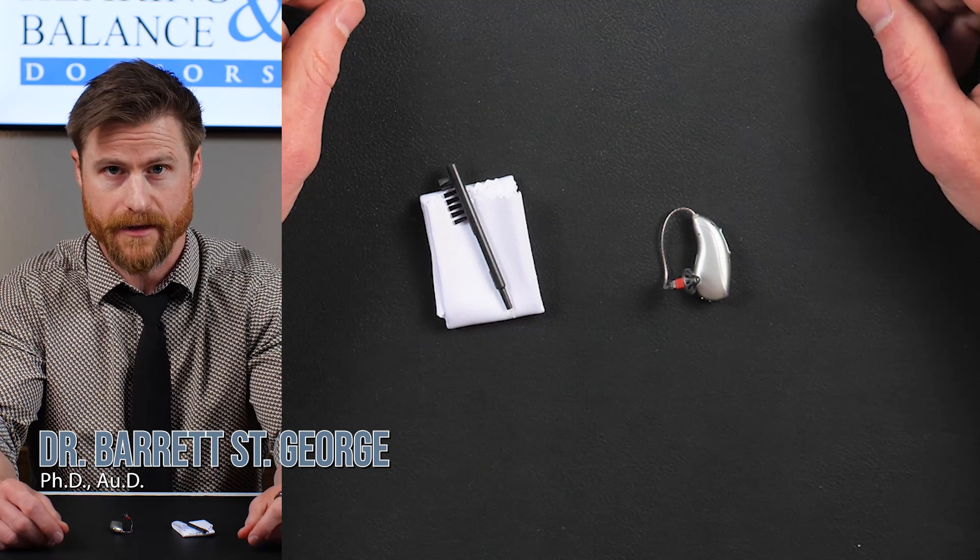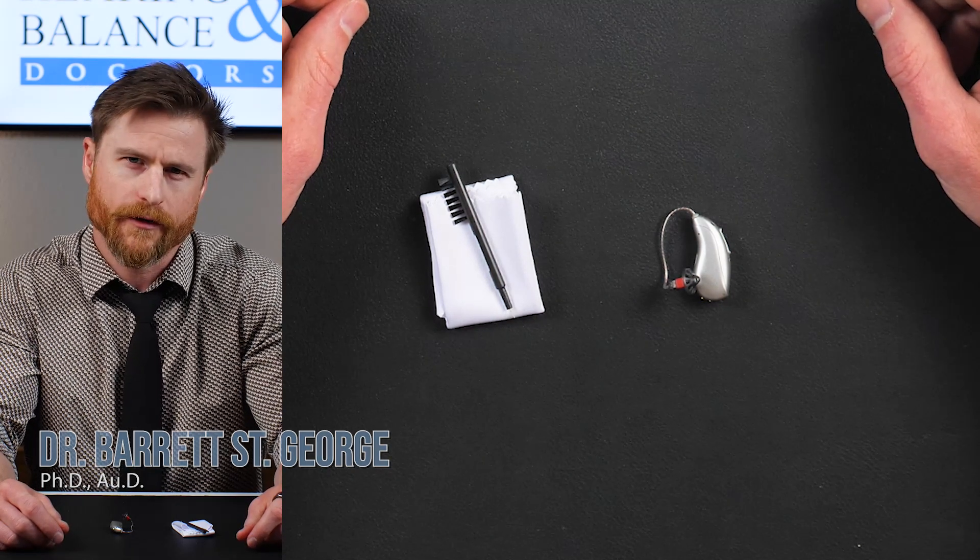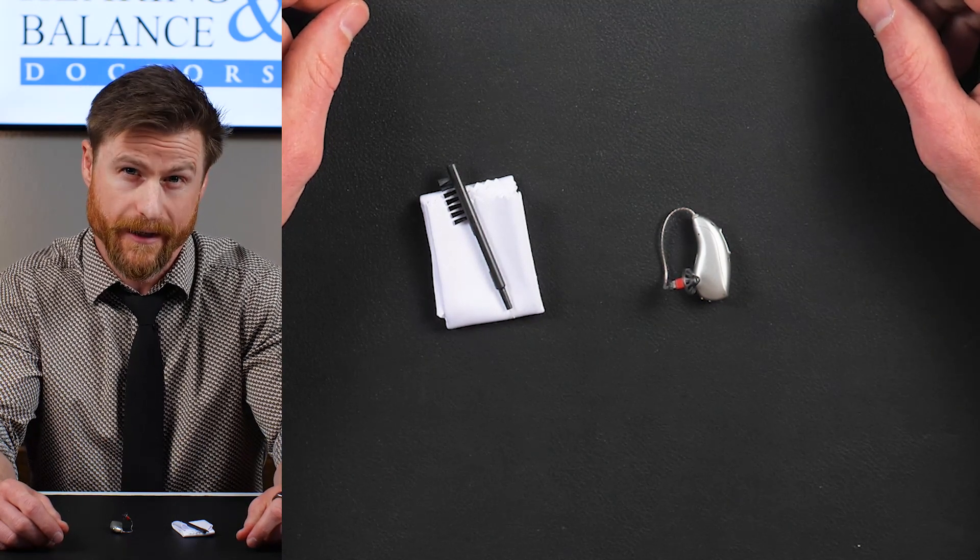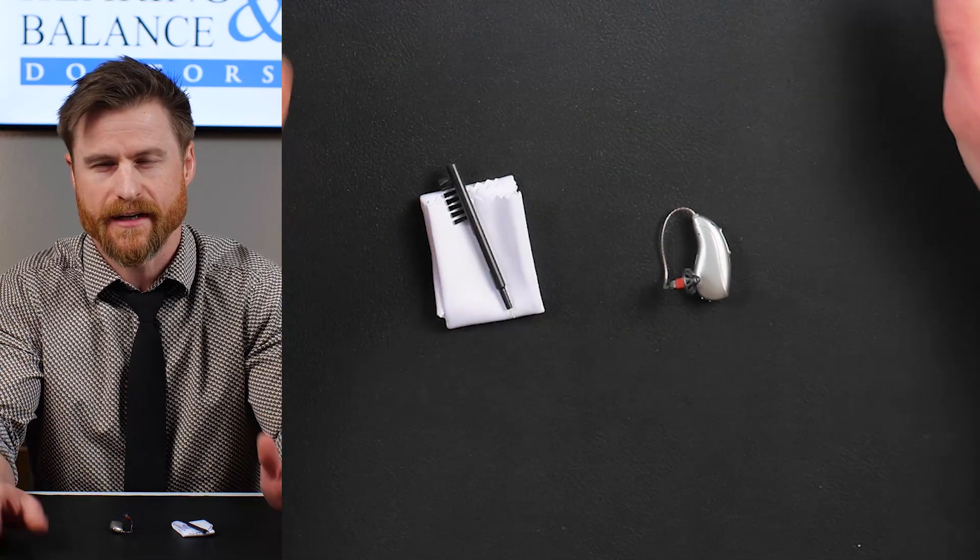Hey everyone, Dr. B here with Hearing and Balance Doctors. Have you ever wondered what the proper way to clean your hearing aids is? I get that question all the time.